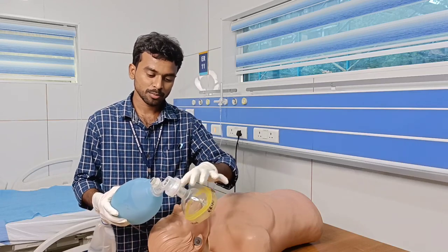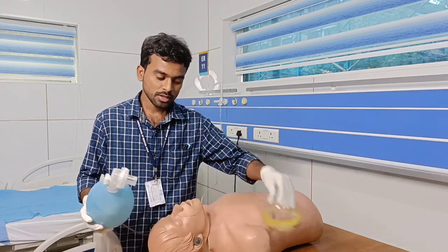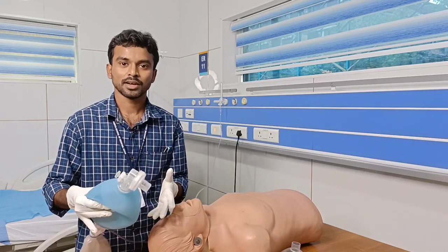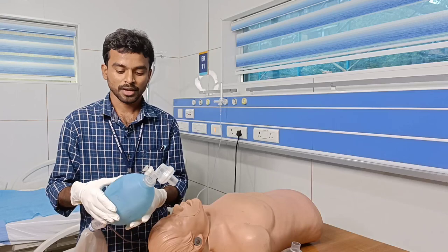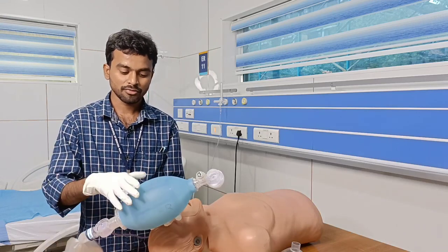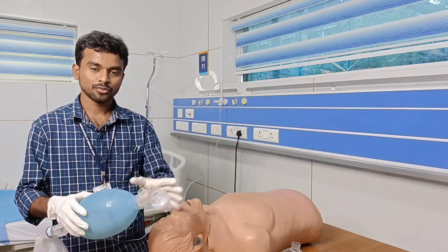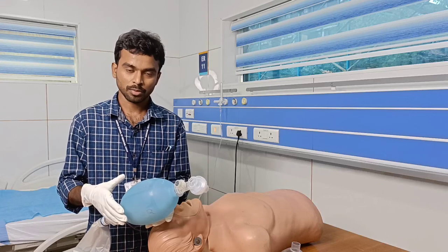Checking the functionality is very important before doing this procedure. First, we squeeze this self-inflating bag. Once you squeeze and then release, if it returns to its normal position, then all the valves present in this AMBU bag are working properly.